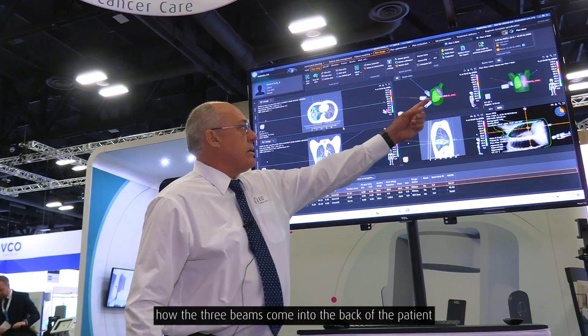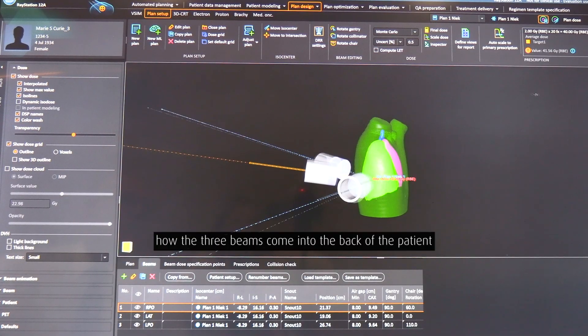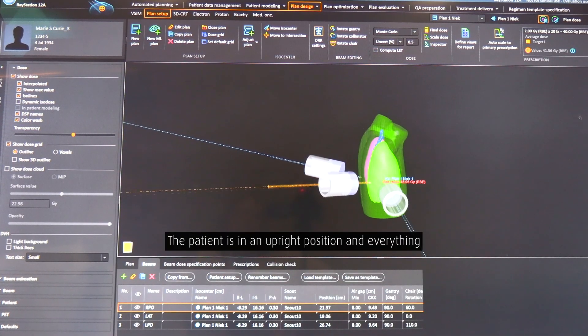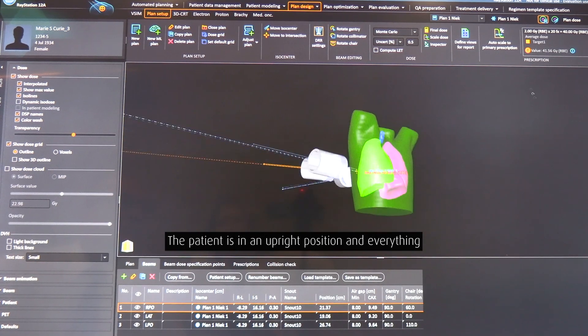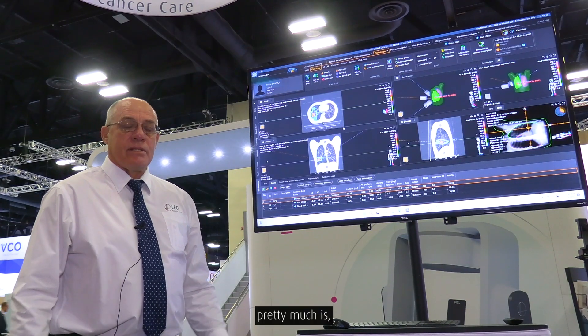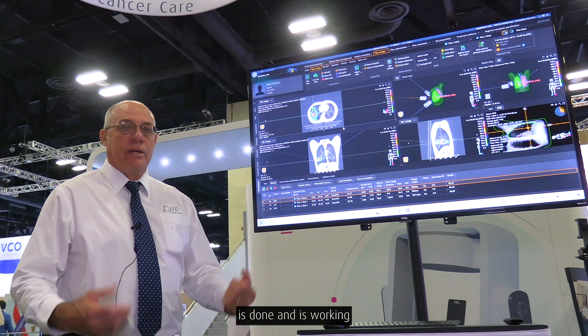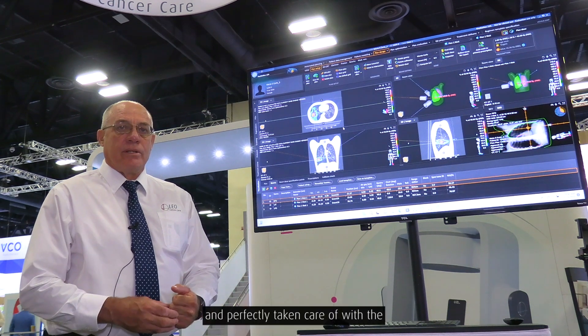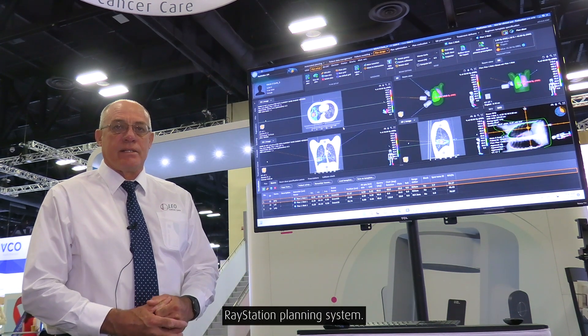We can see here how the three beams come into the back of the patient. The patient is in an upright position and everything is done and working, perfectly taken care of within the RayStation planning system.